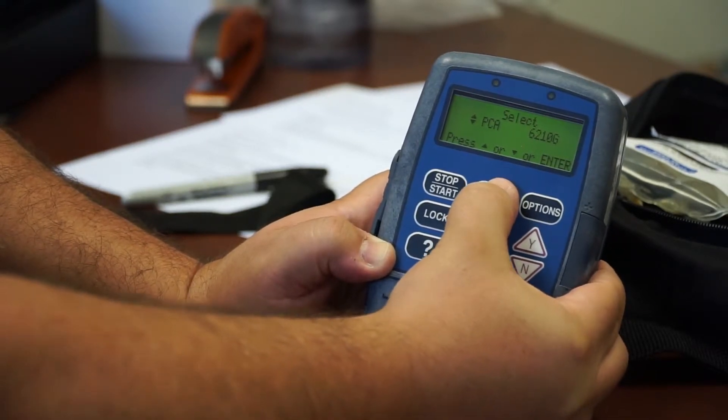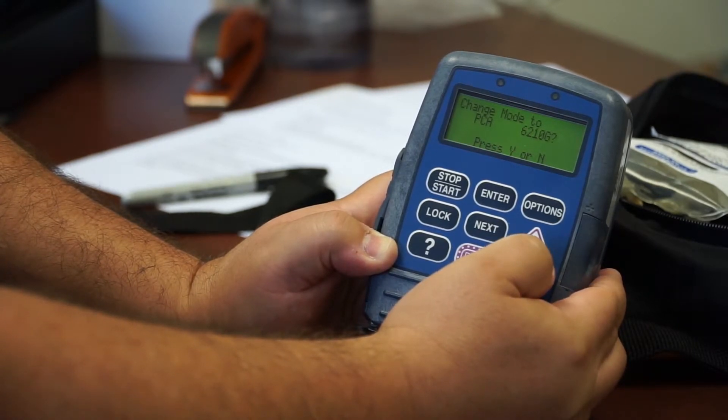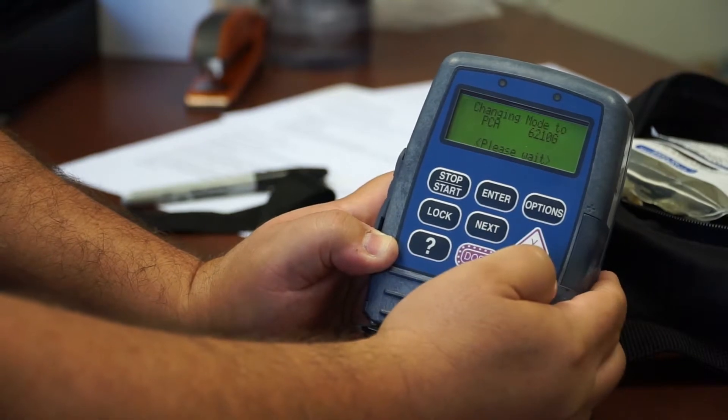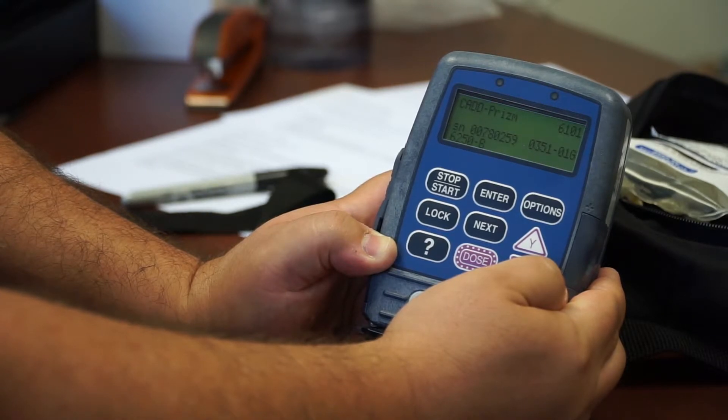Click on enter. And it asks you if you want to place it into that mode. You click on yes. And then it says changing into mode, and it will go through a long process changing its mode. And it will reboot.